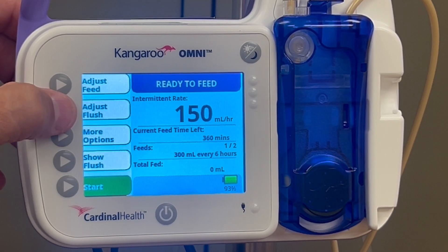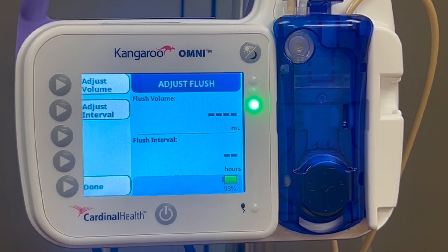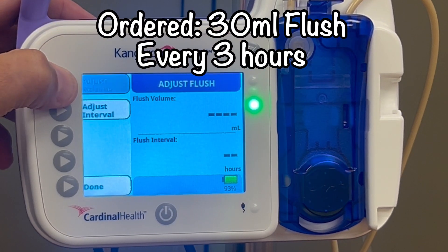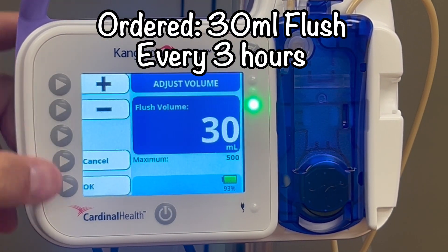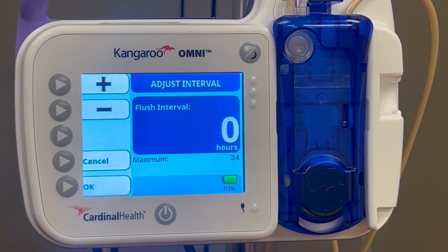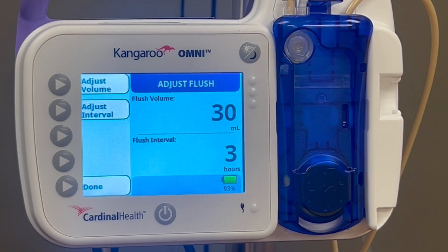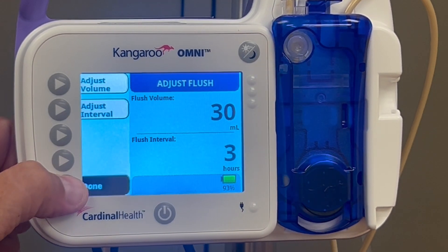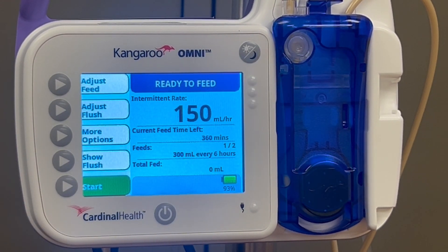Now push Adjust Flush. We need to input the volume — 30 mL — and the interval — every 3 hours — from our order. Input that information the same way we put in all the other values. Push Done to navigate out of the Adjust Flush screen.